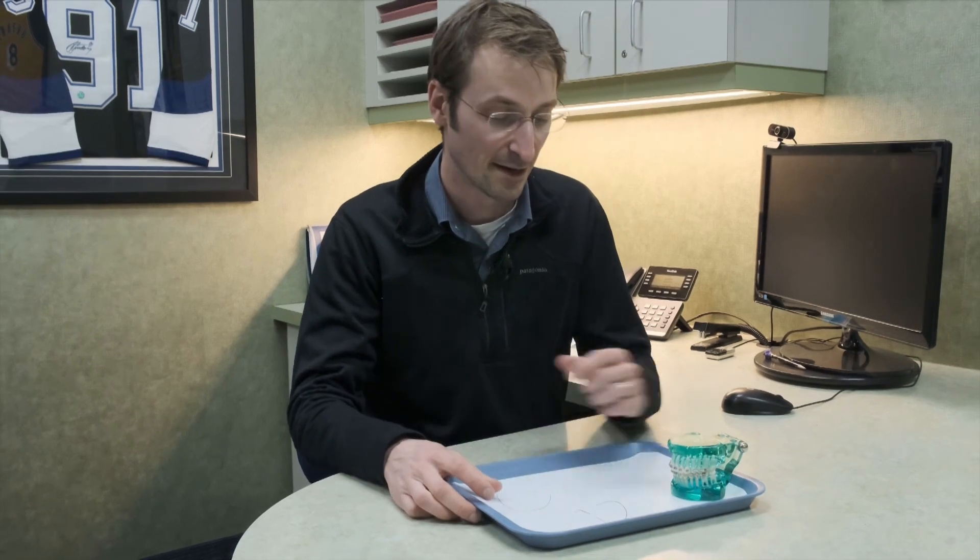We're going to talk a little bit about the mechanics of braces and orthodontics today. I get excited about this because I was a biomedical engineer, and a lot of that involves talking about the forces and how we move teeth.